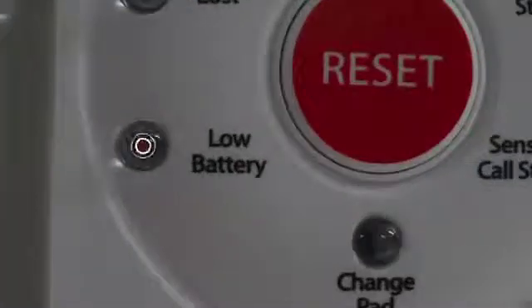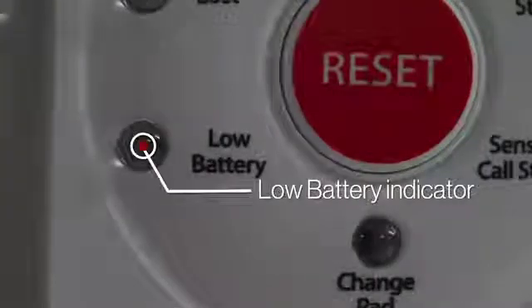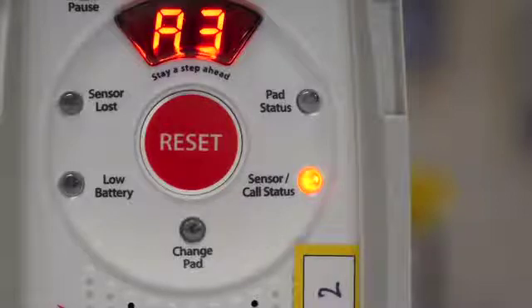The low battery indicator will illuminate and sound when a low battery is detected in the companion or a paired sensor pad. The sensor call status indicator will illuminate when a sensor pad is armed.